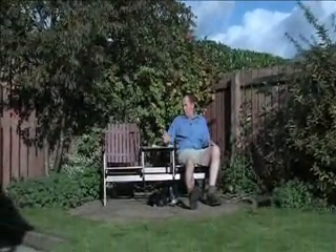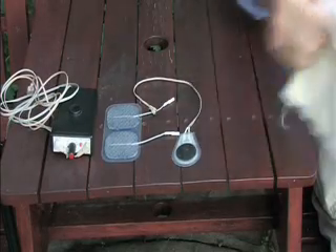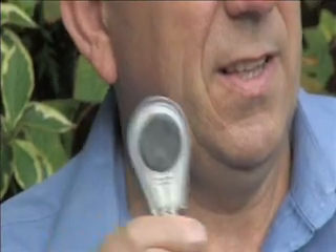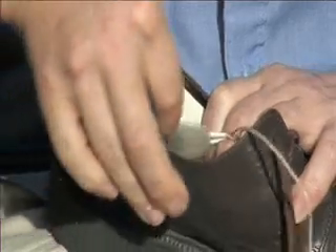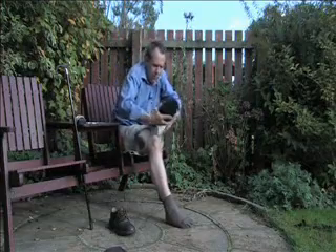This is the routine I've got to do every morning when I get up. Always the same, there's no variation. First thing I've got to do is put my bandage on. That's the foot switch. The foot switch goes in my shoe under the heel. Then I've got to put my shoe on.